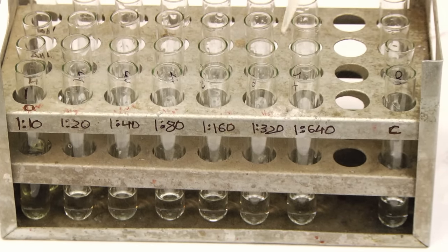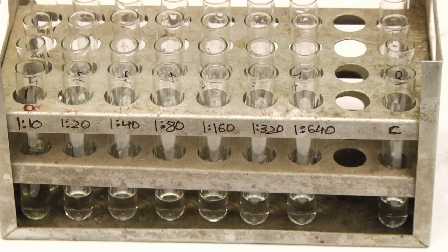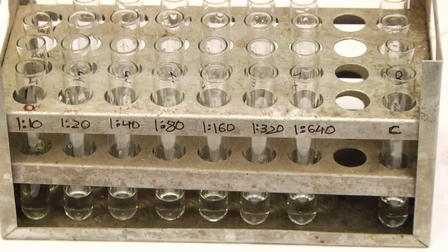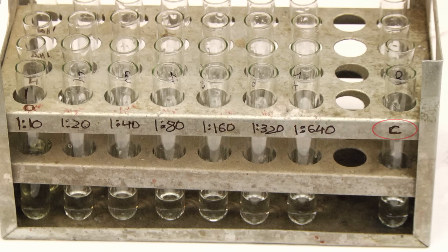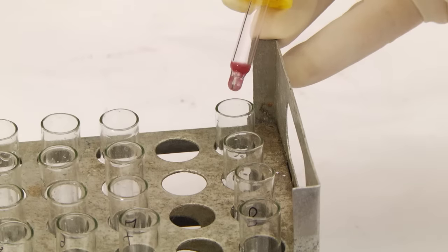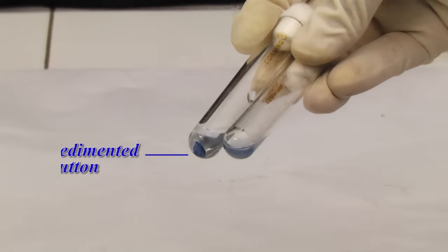Discard 1 ml from tube number 7 of each set. The dilutions achieved from tubes 1 to 7 are 1:10, 1:20, 1:40, 1:80, 1:160, 1:320, and 1:640 respectively. Tube number 8 in all sets serves as a saline control. To all tubes 1 to 8 of each set, add 1 drop of the respective well-mixed antigen suspension and mix well. Cover and incubate overnight at 37°C. After incubation, dislodge the sedimented button gently and observe for agglutination.